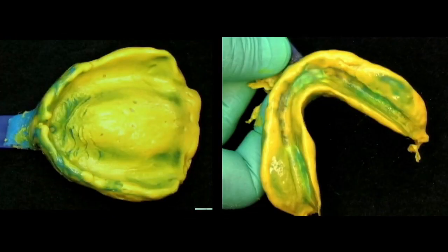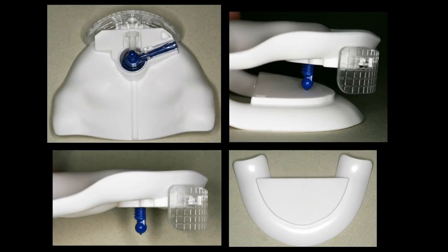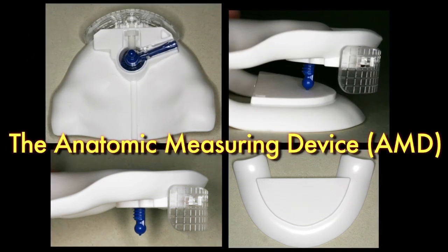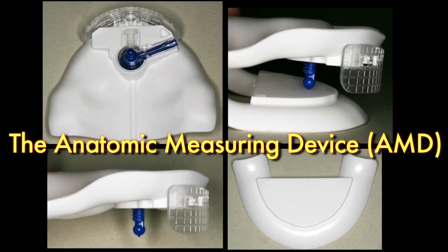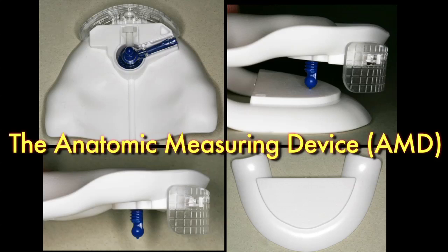Hi, I'm Dr. Charlie Goodacre from Loma Linda University, and I'm going to talk to you today about the use of digital complete dentures and the application of this CAD-CAM process to the implant world. This begins by making traditional impressions for a complete denture and then using the uniquely designed AMD, or anatomic measuring device, which allows us to record the occlusal vertical dimension, centric relation, and lip support all in one device.